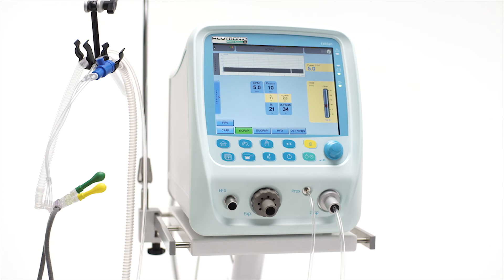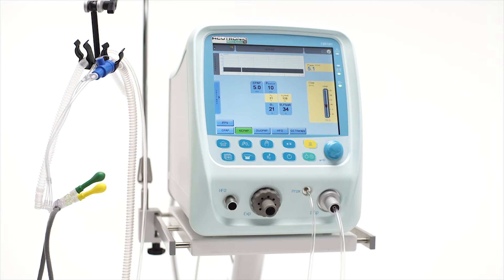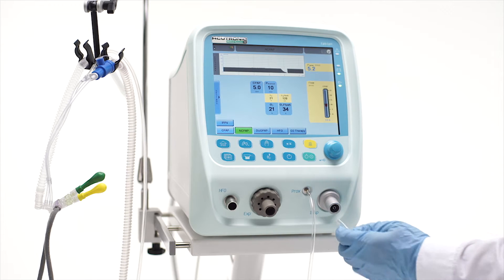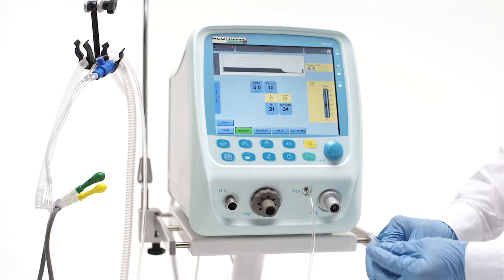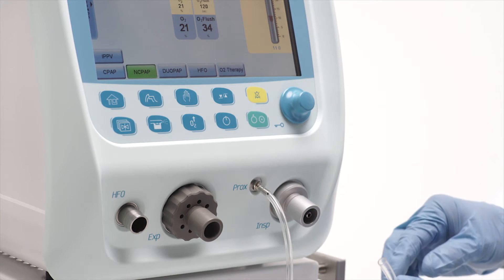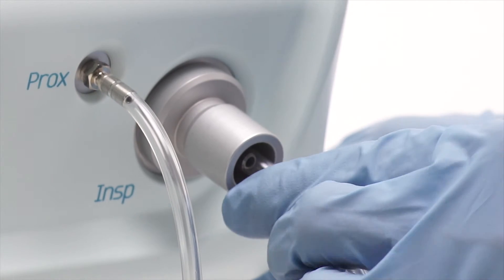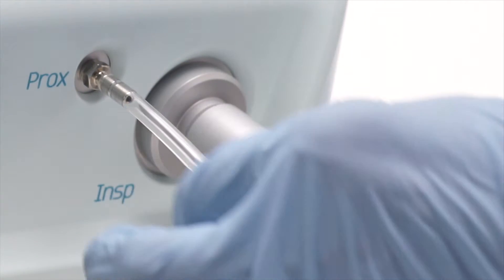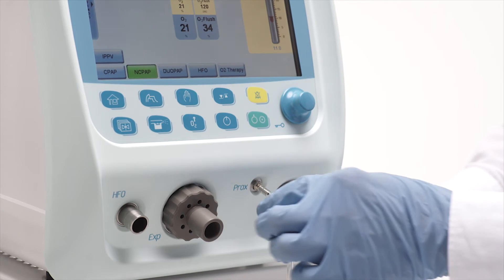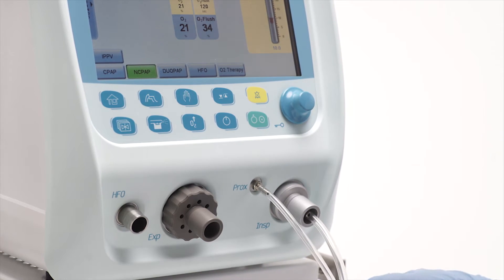First of all, to use the NIV features — NCPAP, Duopap, or O2 therapy — the special infant flow connecting tube must be connected to the internal inspiratory NCPAP port and to the humidity chamber. The pressure measurement line must be connected to the corresponding connector of the generator.